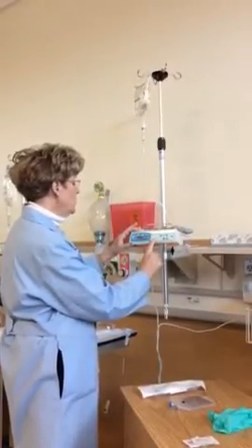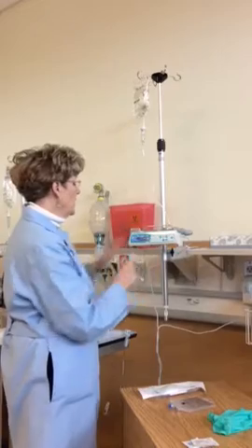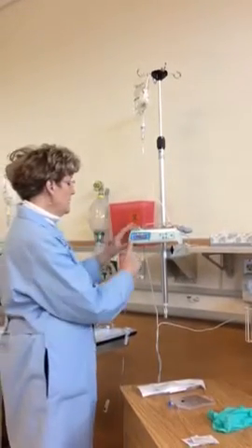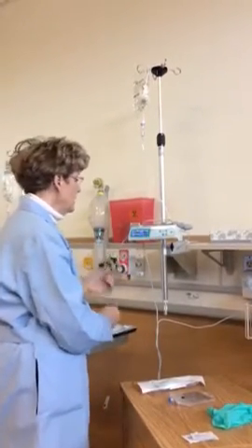You always get the old numbers in your pump often when you turn it on, so you have to make sure you go through and clear it out. So I have a volume to be infused. My VTBI now is 40. I'm going to say okay. I'm going to take that. All right, so my primary is set.